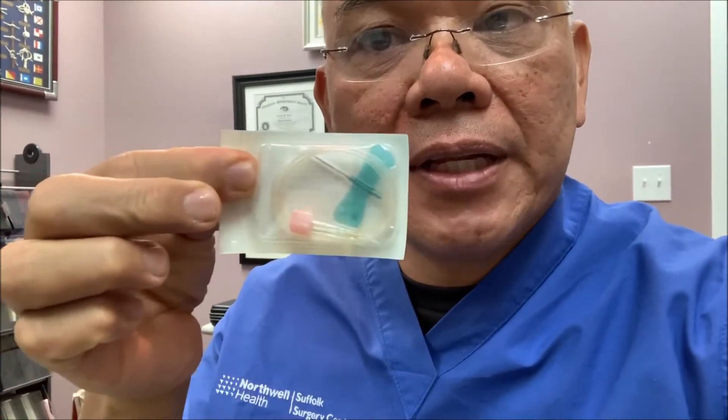For the fluorescein angiography procedure, you will be dilated. Dye is introduced intravenously into the body — only a small amount is used, approximately 3 cc's. We use a very small butterfly needle, and the dye is introduced into the body in a hand vein or lower forearm vein. The dye is necessary so that we can look for disease inside the eye.